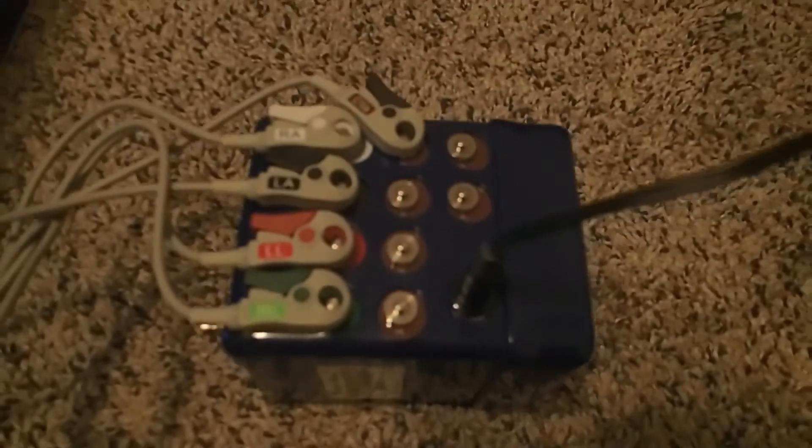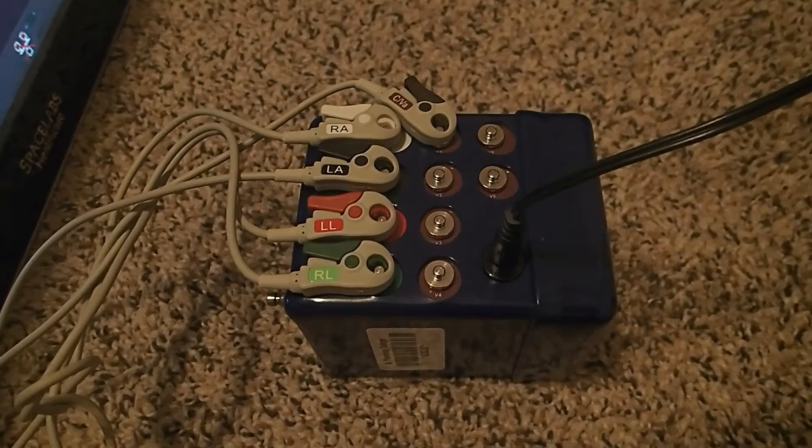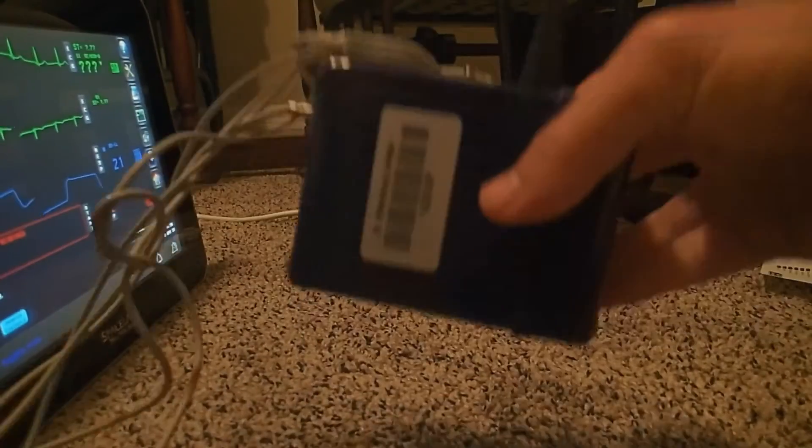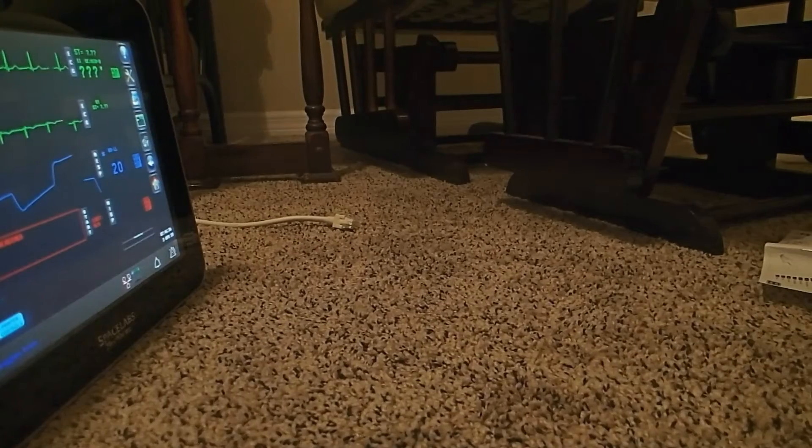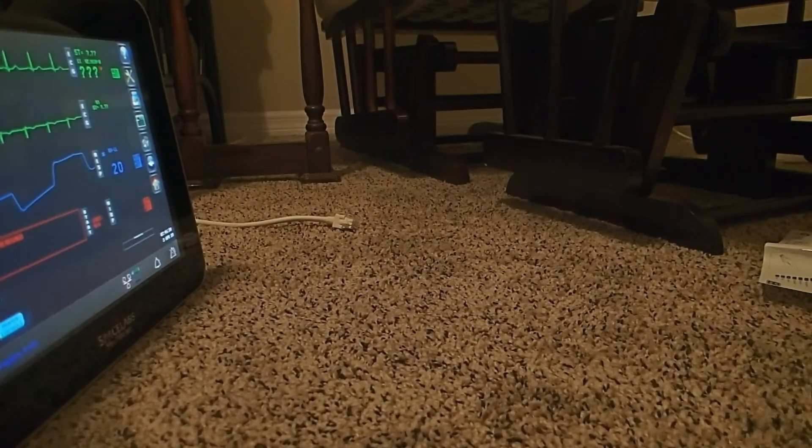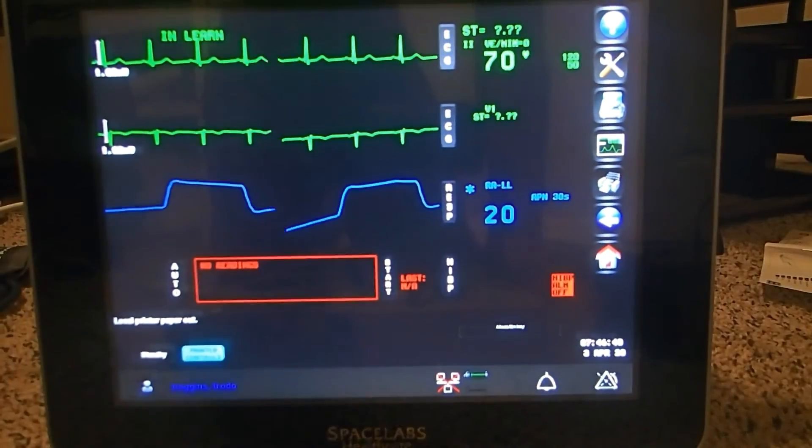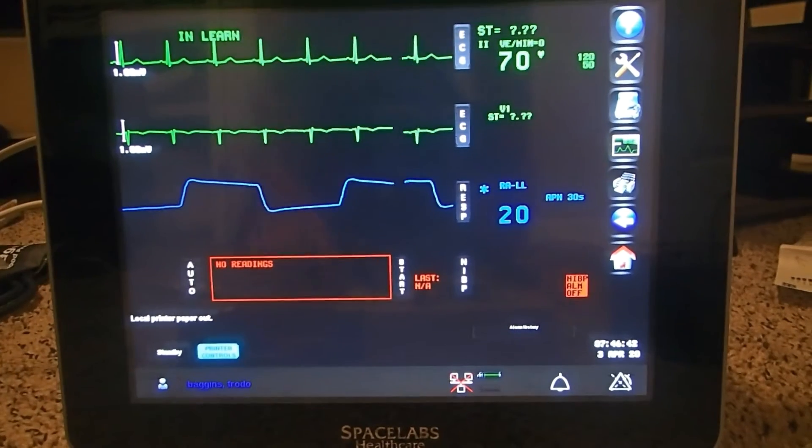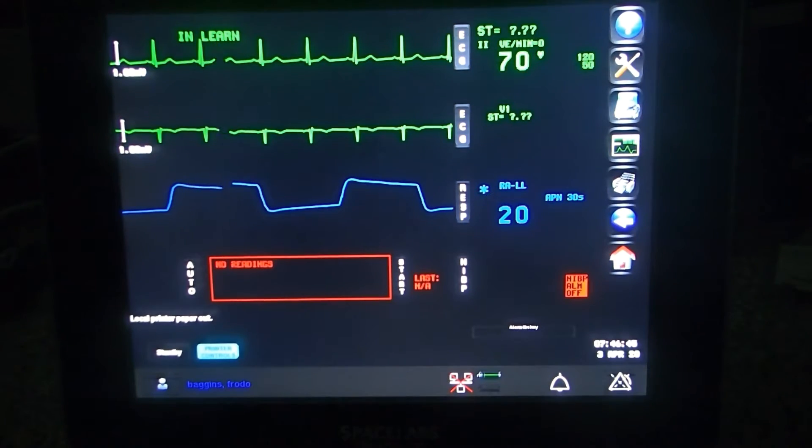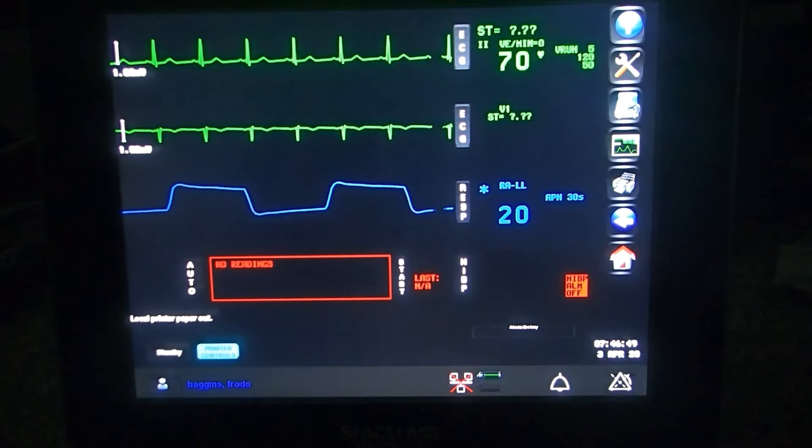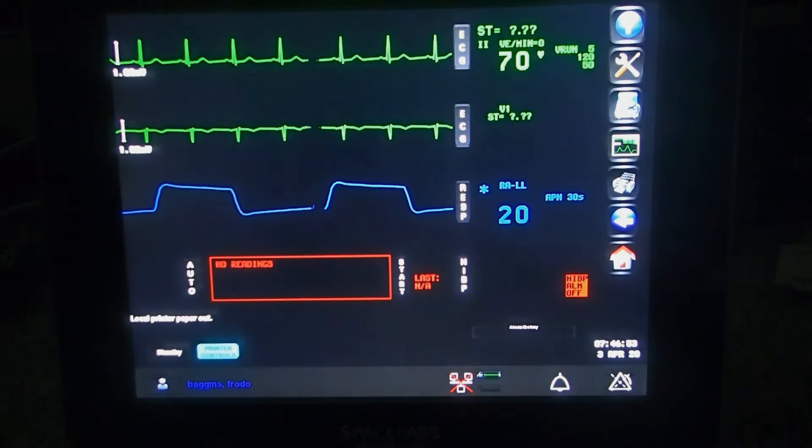Once we've connected our leads correctly, right now you can see we have a stable 70 beats per minute ECG waveform.